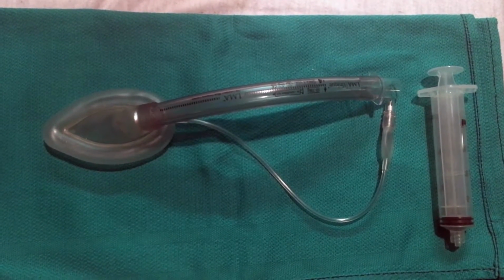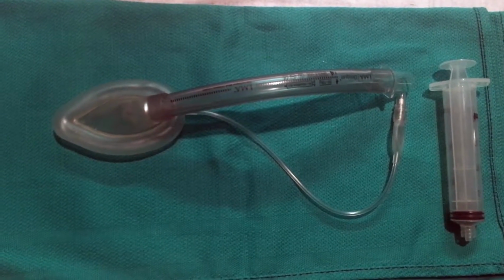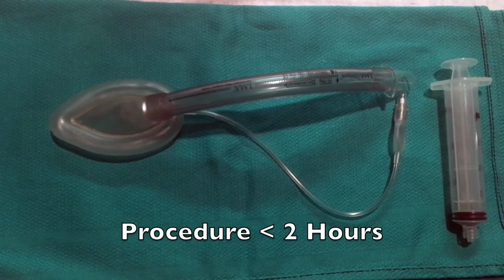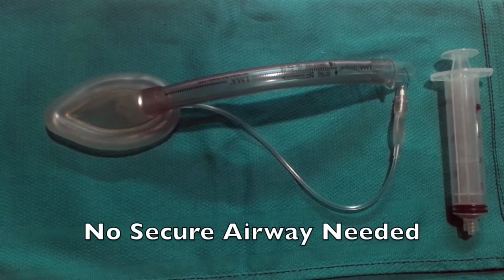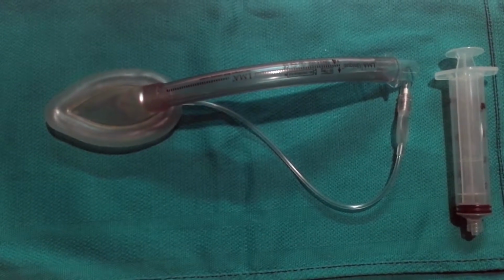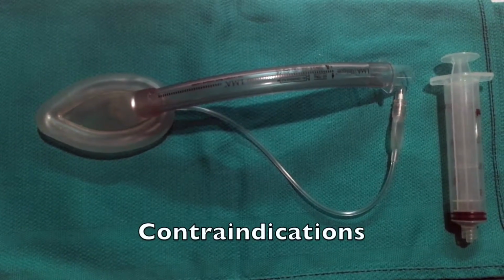This is an example of an LMA, or laryngeal mask airway. Some indications for its use include procedures that last less than 2 hours, or when the patient pathology or procedure does not require a secure airway. There are some contraindications for its use, however.